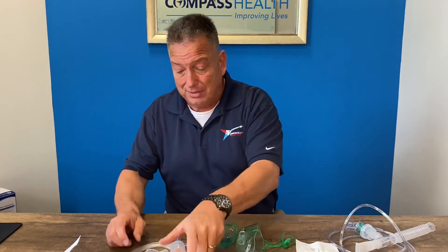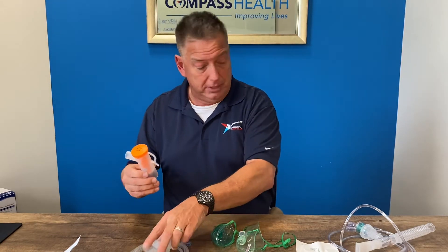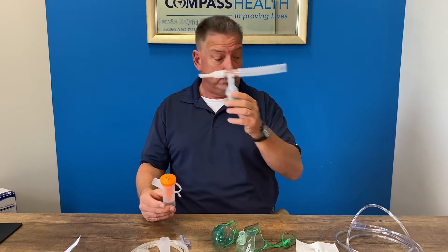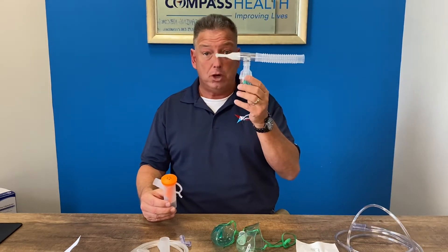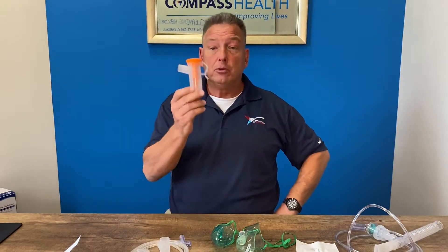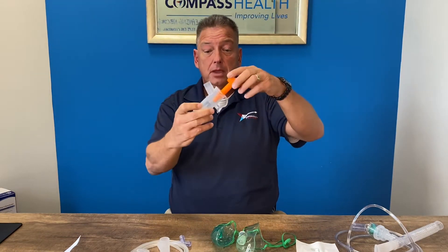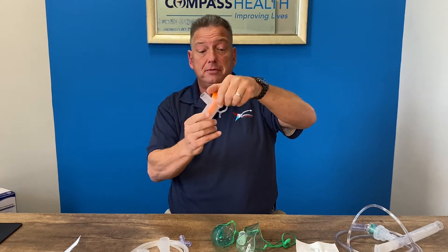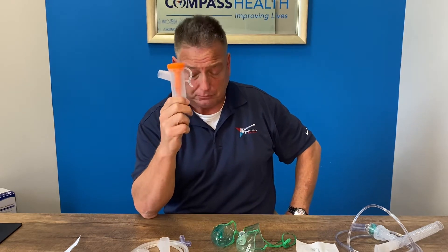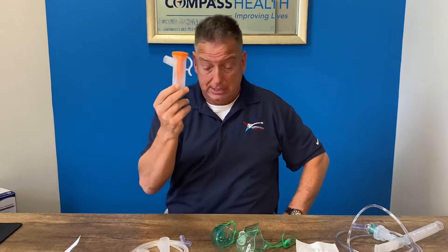Certain units will also have an optional reusable circuit included. On the reusable circuit, the disposables are good for two to four weeks, then they must be replaced. They also must be hand-washed in soapy water with dish soap. The reusables have fewer internal pieces and are actually dishwasher safe. They not only reduce treatment time by about 50%, they are also good for six months when maintained properly.